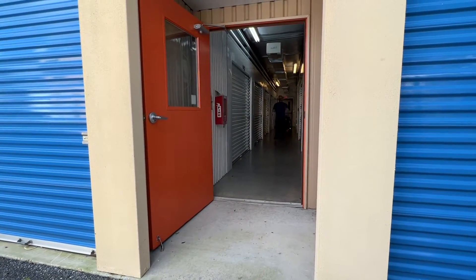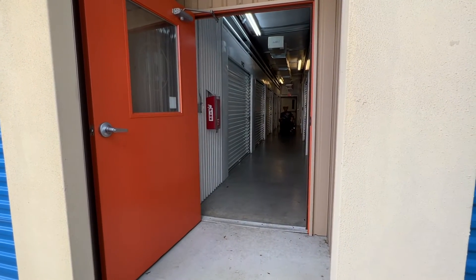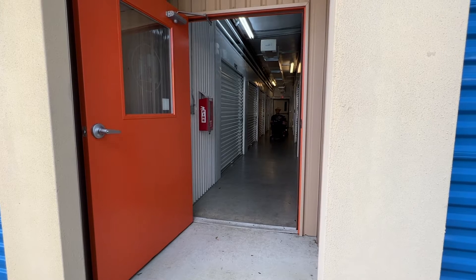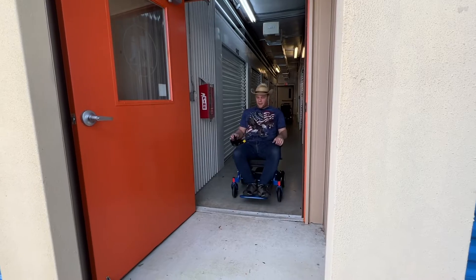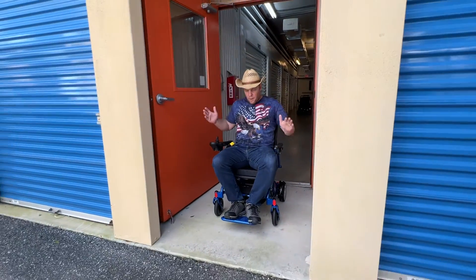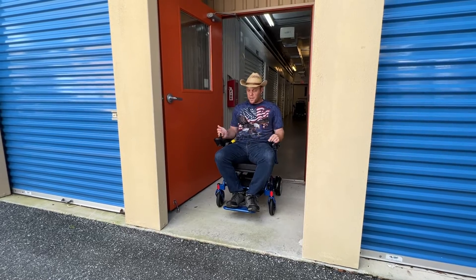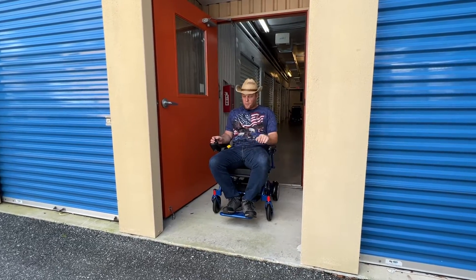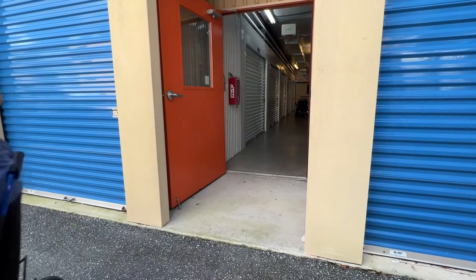Now we get a little bit more momentum, a little bit more travel time with this one. We've got the Phoenix — here we go. Cruising speed and cut. Look at that — a few inches shorter. This stops within less than five feet from full tilt down the hallway.